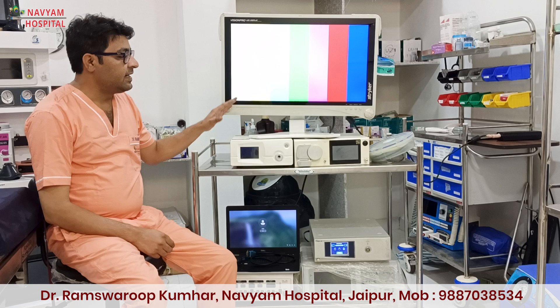Hello everyone. Many of my friends have required me to start up their own laparoscopic setup and they are worried about the cost and from where they have to manage all the lab set. So this video is purely dedicated to those friends who are presently trained or want to start their own laparoscopic setup in either their own hospital or for a freelance setup.